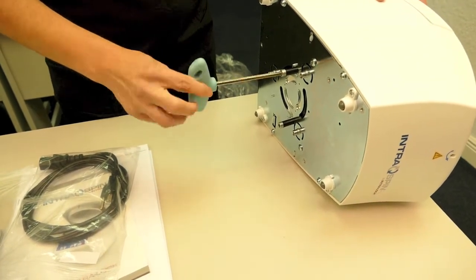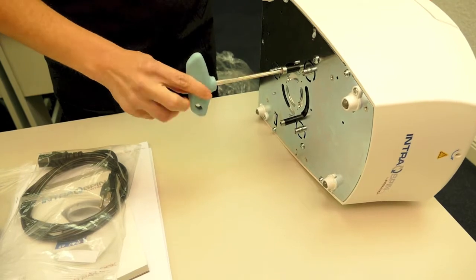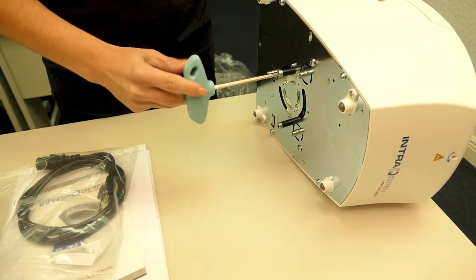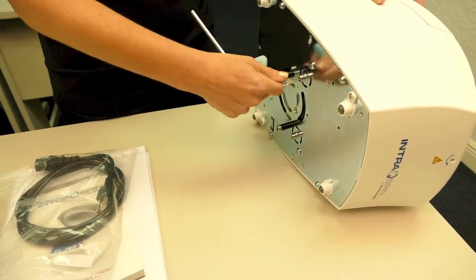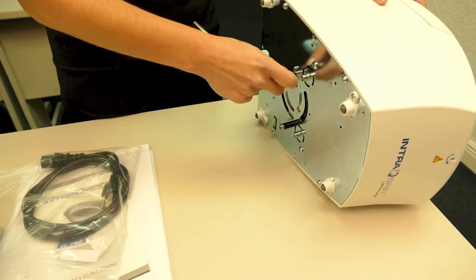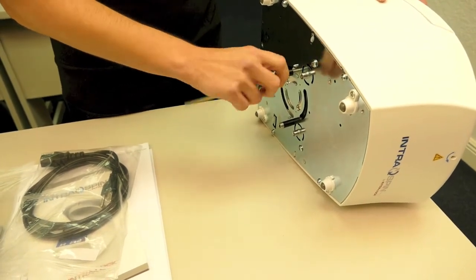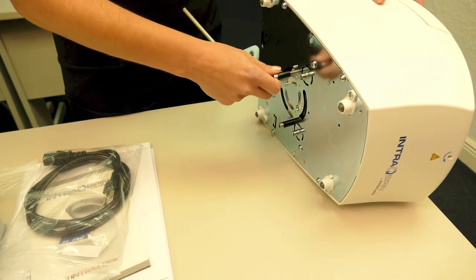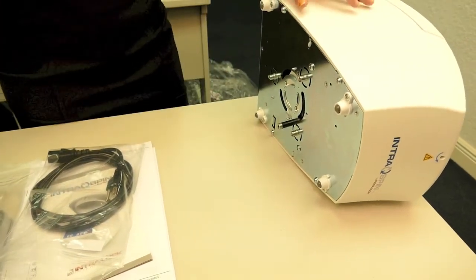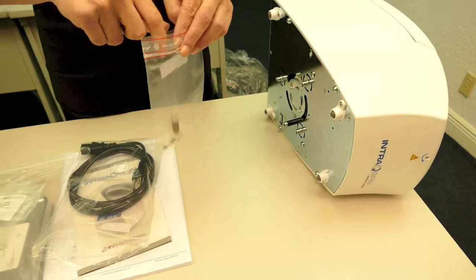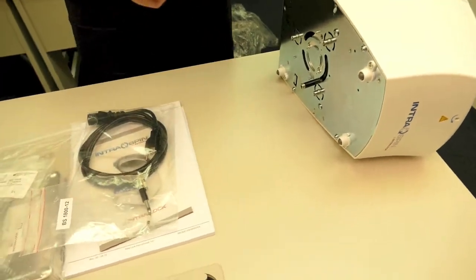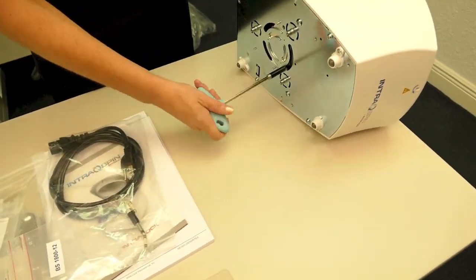Very simple. Just unscrew both bolts. You'll want to save these bolts. You have two extra fuses inside the baggie. Remove the second.